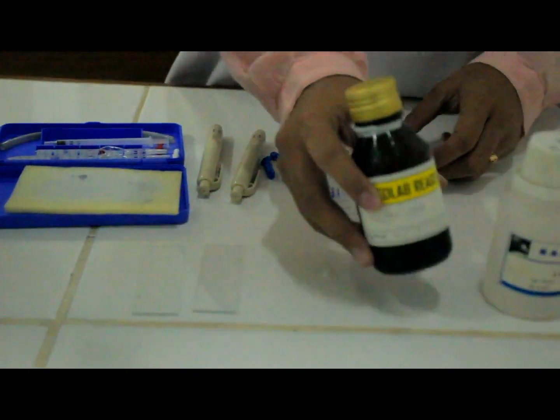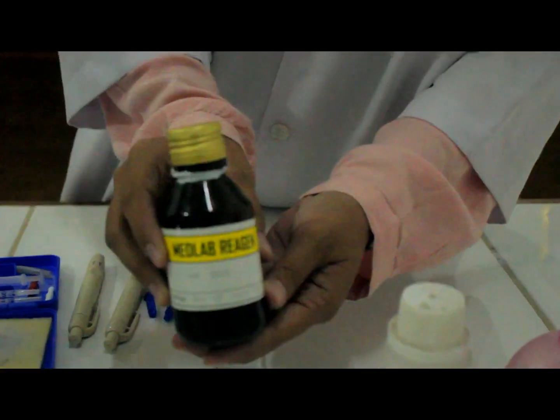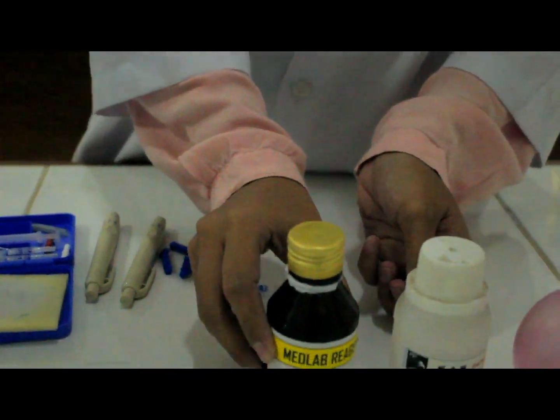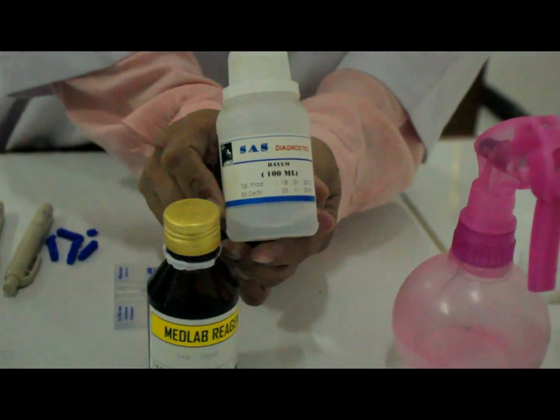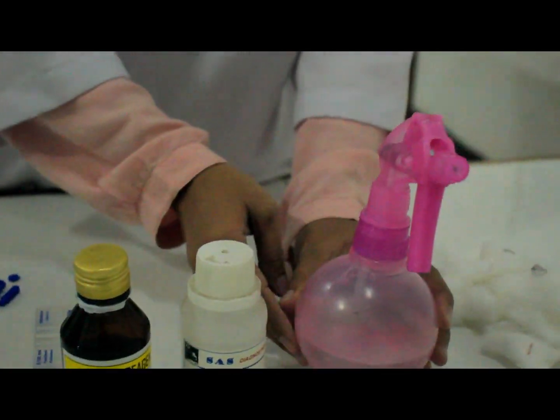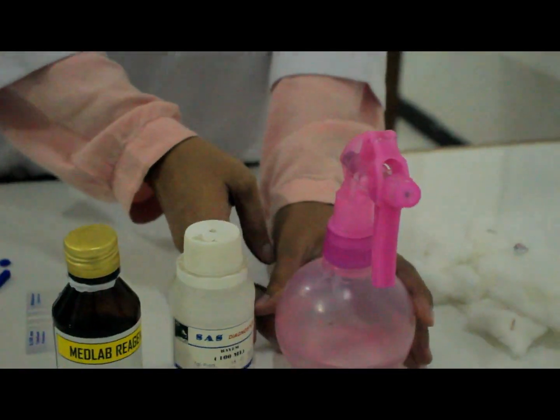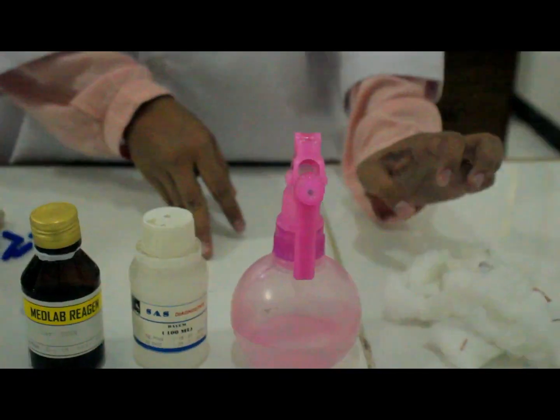Then the materials include larutan truk (Turk's solution), larutan haim (Hayem's solution), alkohol 70% (70% alcohol), and kapas (cotton).